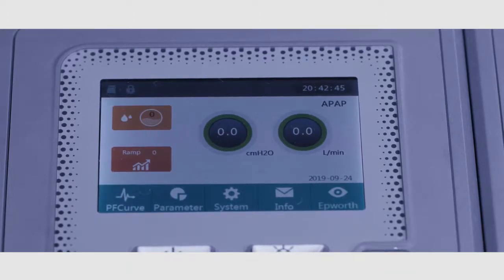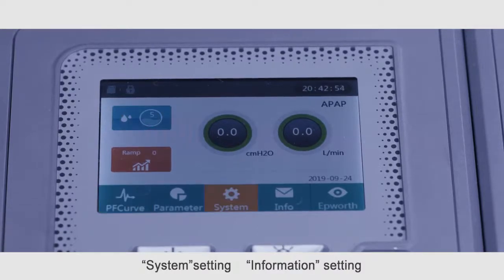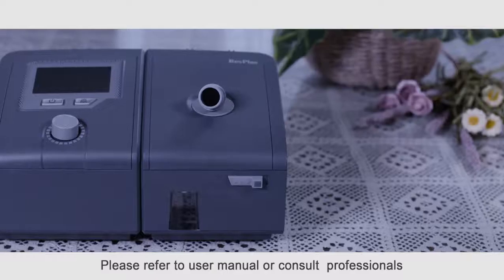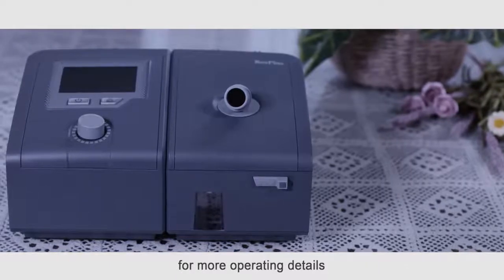actual needs. Besides parameter, the other settings like PF curve setting, the system setting, information setting, and Epworth sleep quality questionnaire are available and adjustable as users wish. Please refer to the user manual or consult professionals for more operating details.